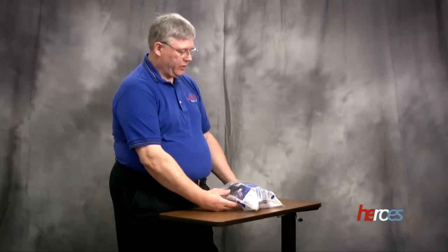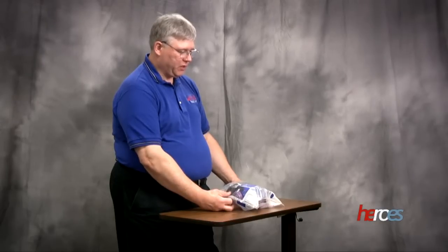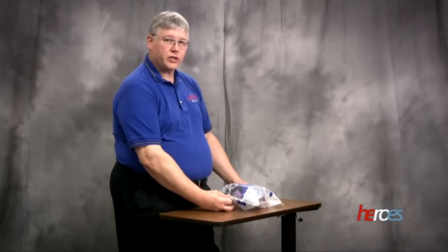So when you wash the respirator, you don't want to immerse the filters in water or moisture, and you want to make sure that if they get blood or body fluid splashed on them that you discard them and get new filters. Thank you guys for tuning in!